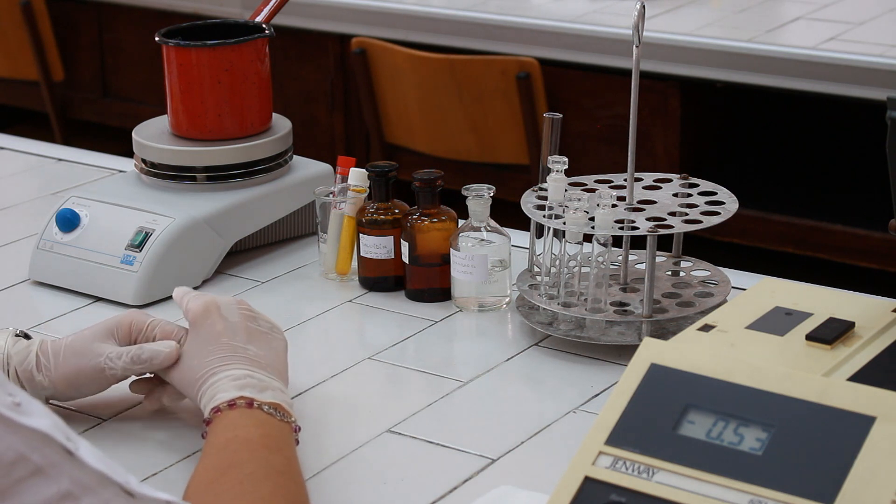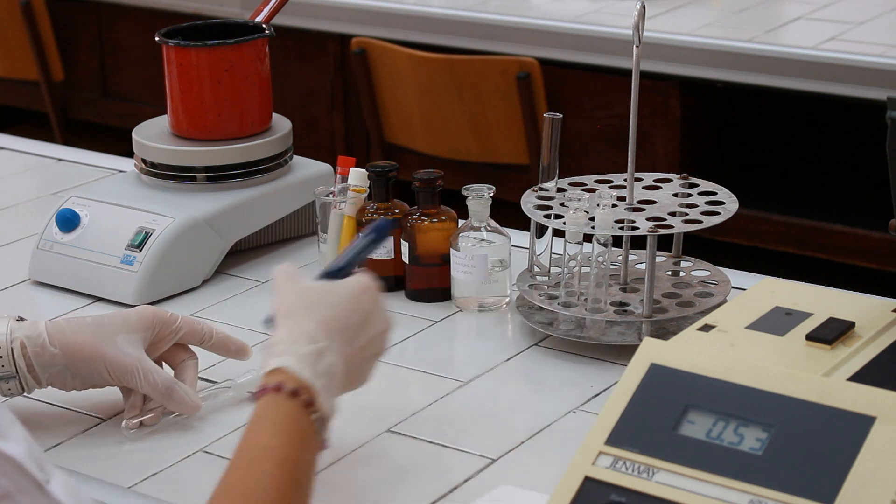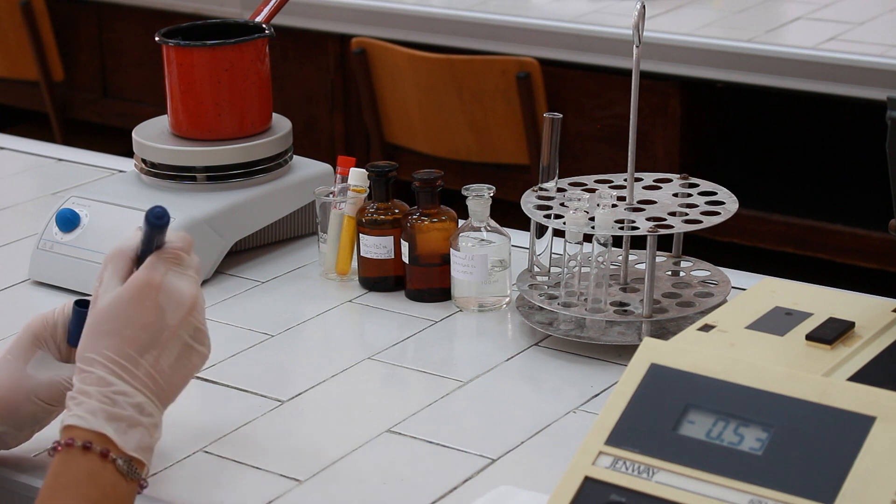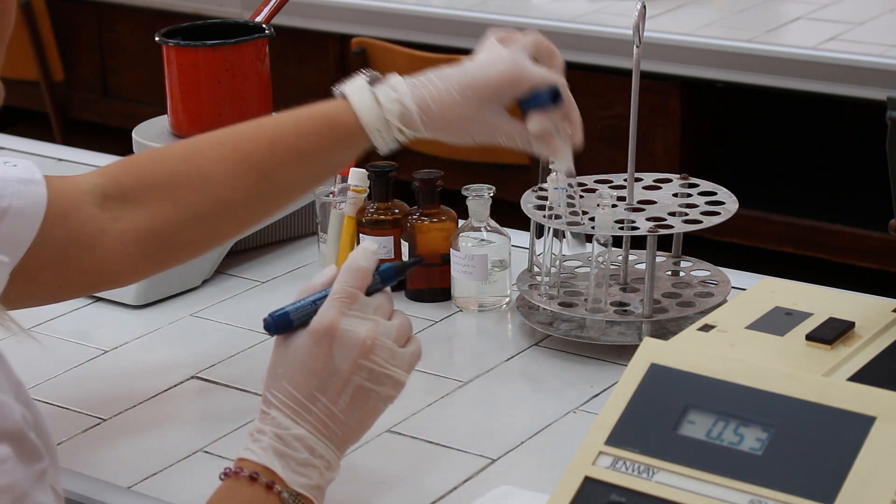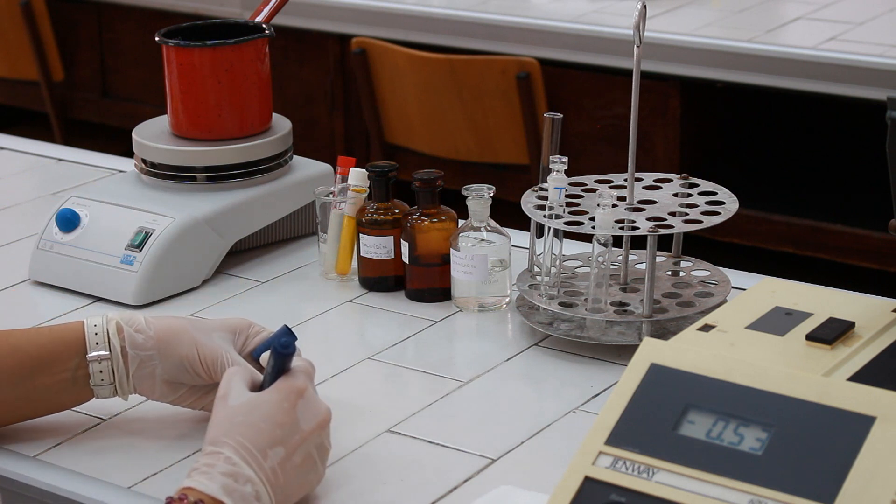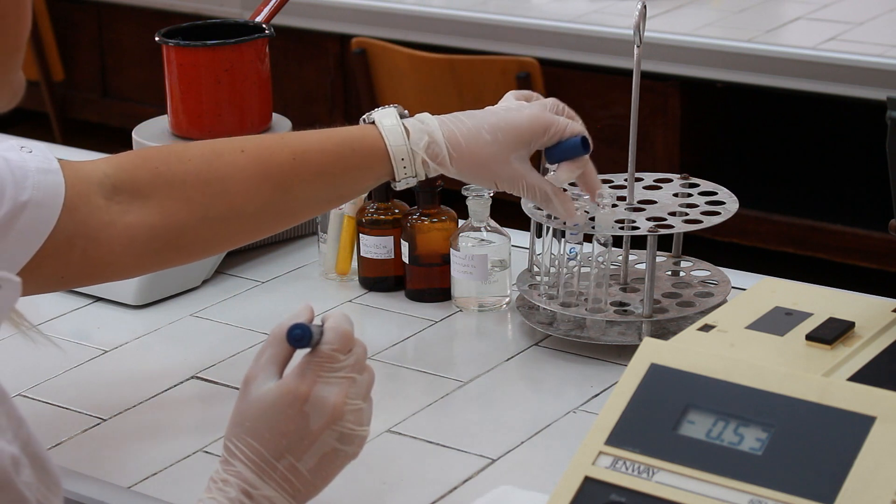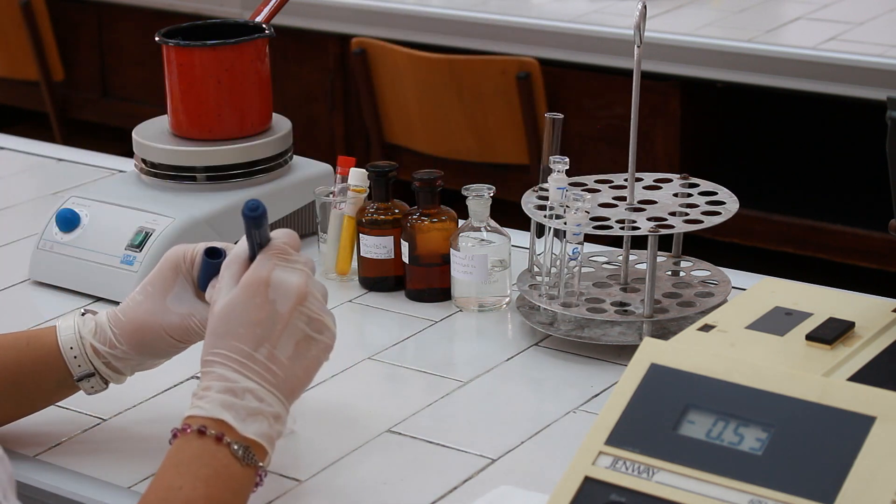The procedure starts by marking the test tubes. The first test tube with T, then the second test tube with S as standard, and the third one with B for blank.